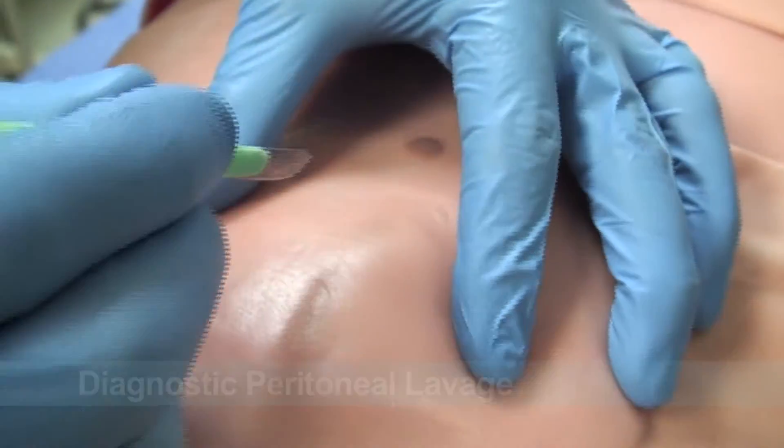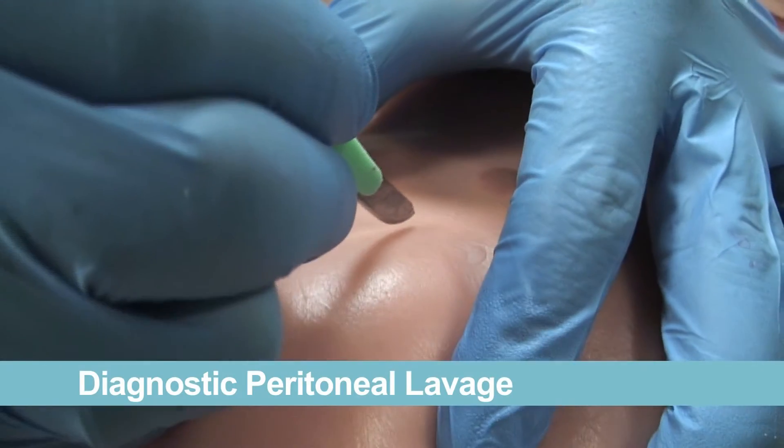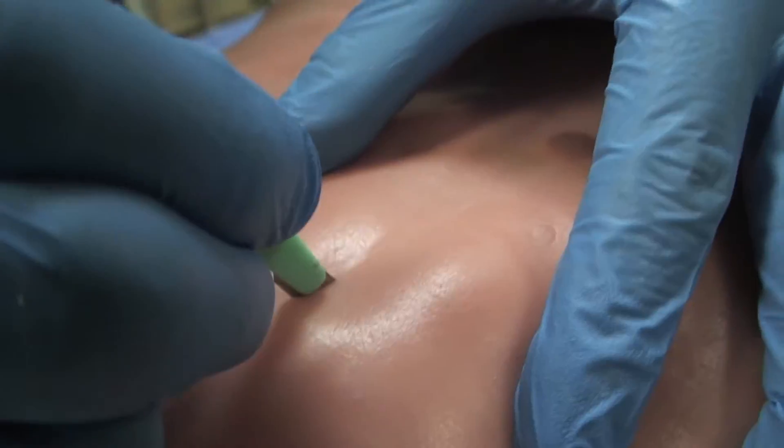Now we are witnessing the diagnostic peritoneal lavage on the original TraumaMan body form.